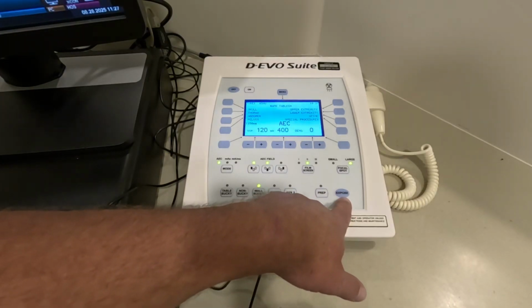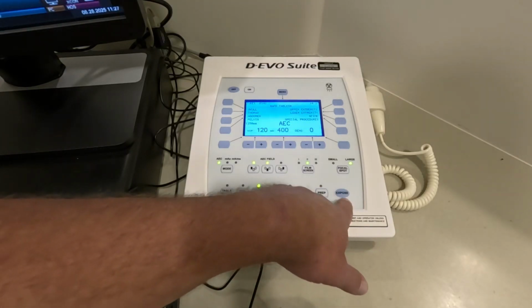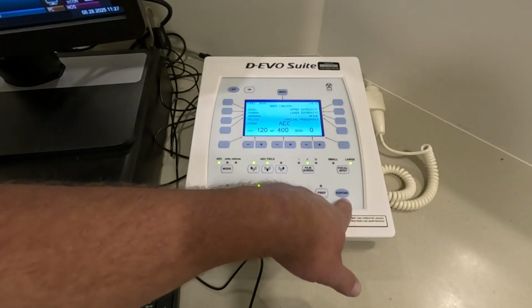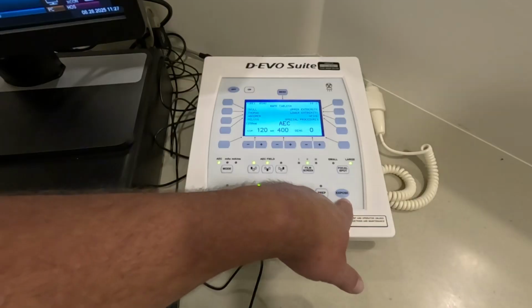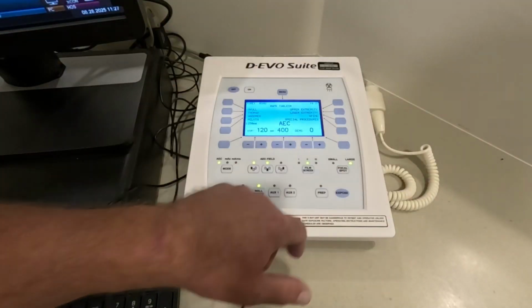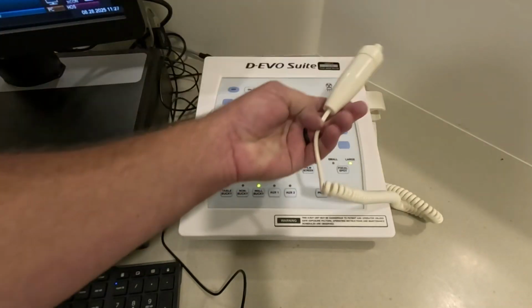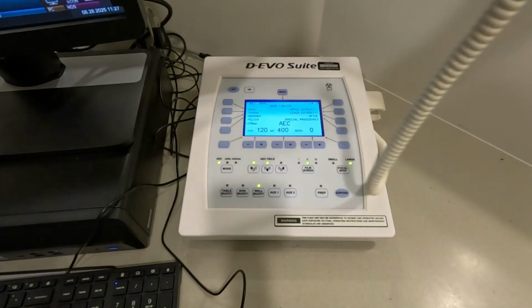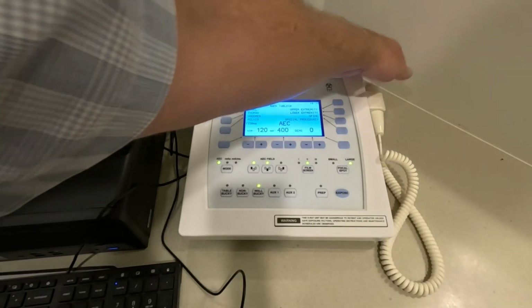You also need to know that you can't just jump onto the exposure button and expect to have an immediate exposure. It's for safety purposes for the x-ray tube. It's going to limit you to an exposure after that 1 second after the rotor gets up to speed. Same thing with this button here. A button like this is sometimes on portables. This gives you a little bit more distance to get away from the patient and step out of the room to make your exposure.